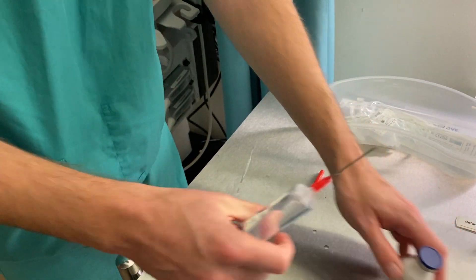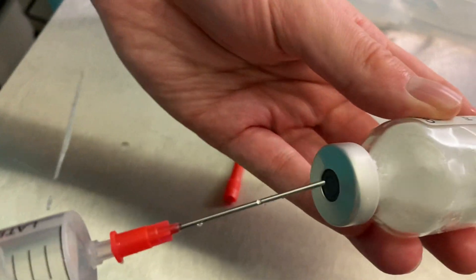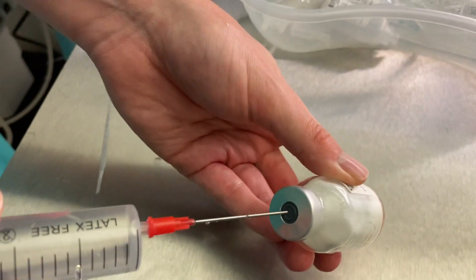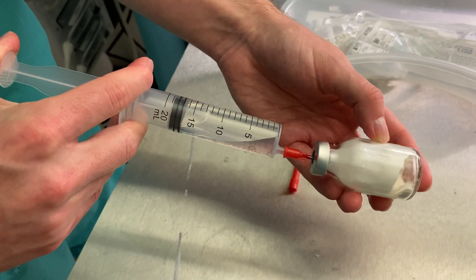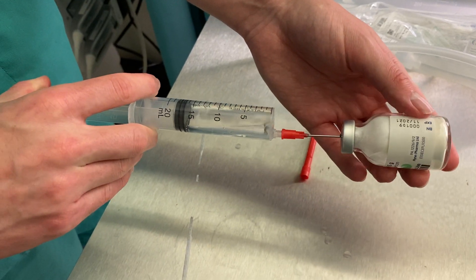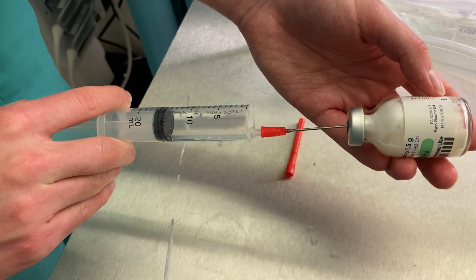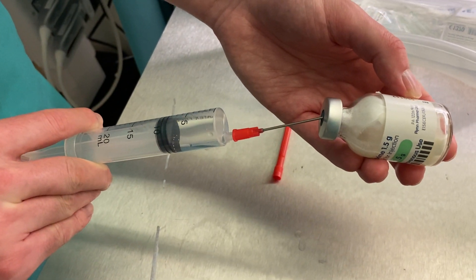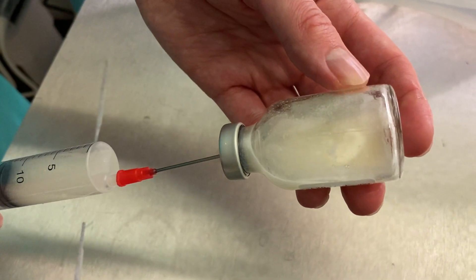There's still a little bit of air in it — that's absolutely fine. We pop the cap off; there's a little rubber top on it. Needle through, and then we're going to push some water in and allow some air back out into this syringe. So you can push in lots, air back in, push in fluid and allow air back in. This stops the pressure getting really high inside your glass vial, and you can see now that most of the fluid is in there.